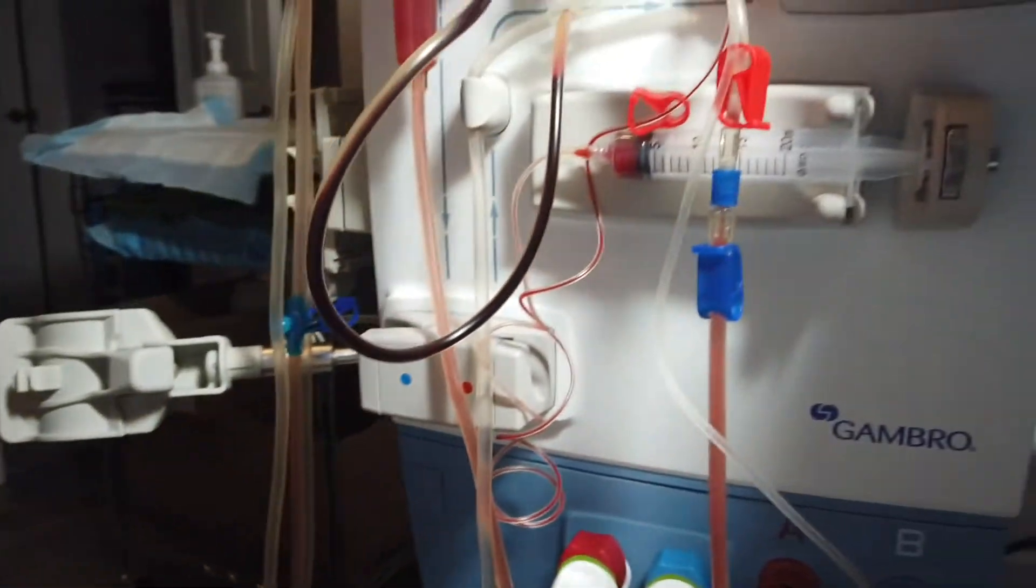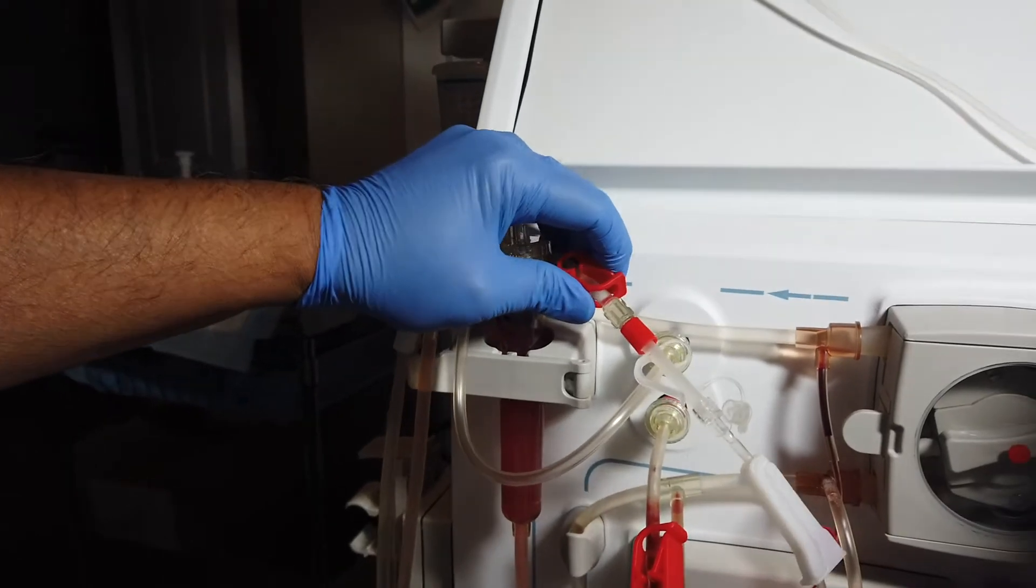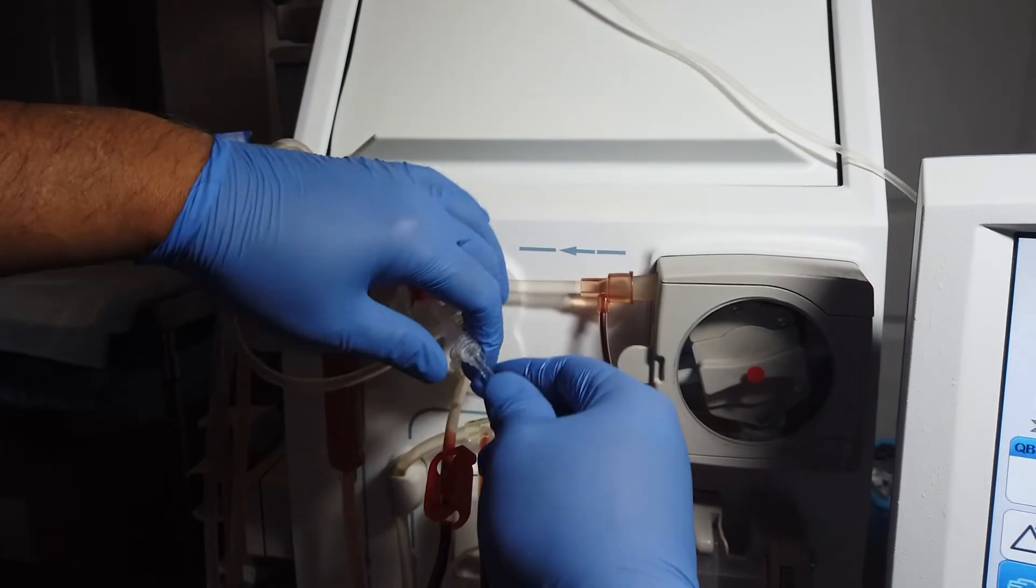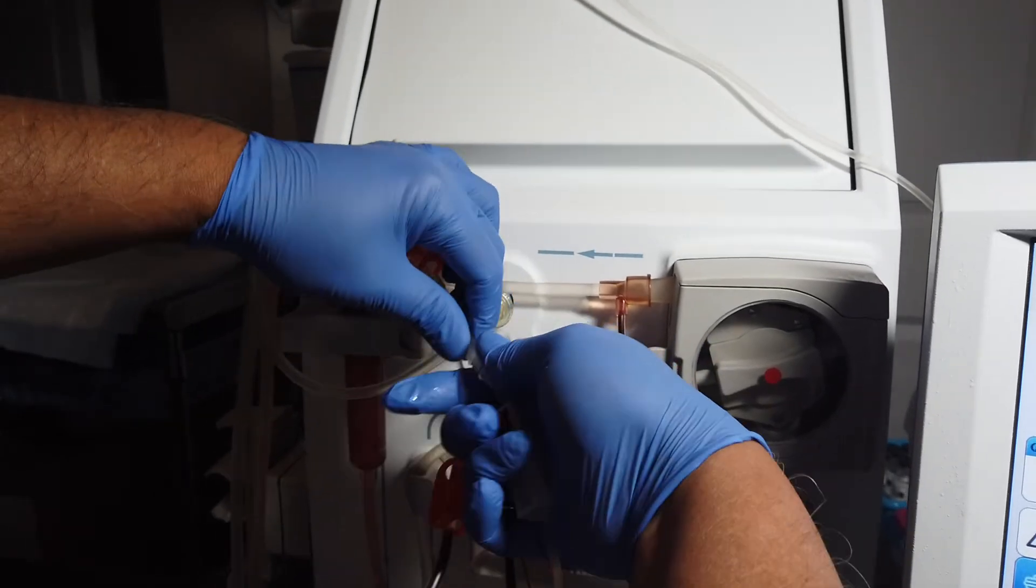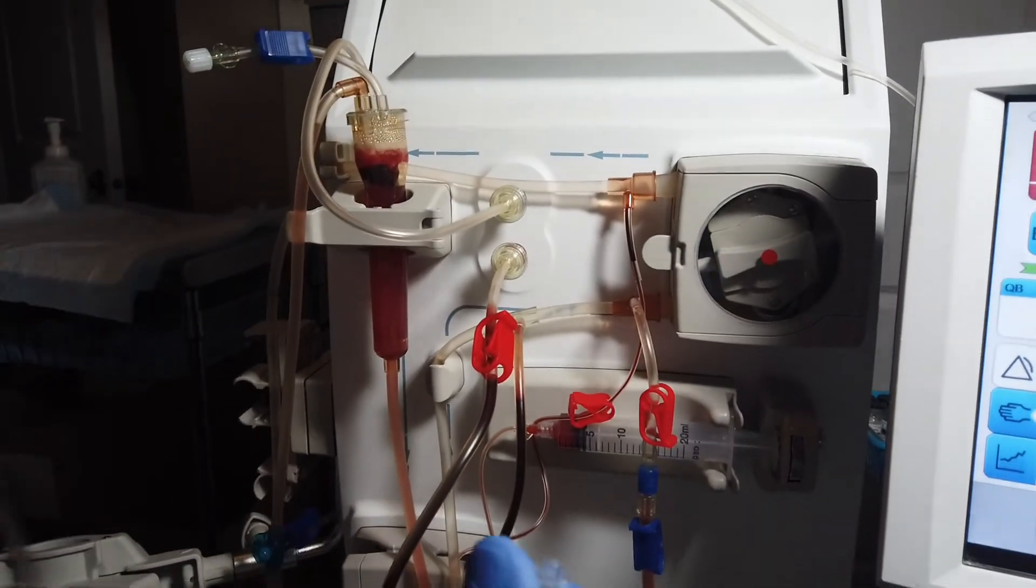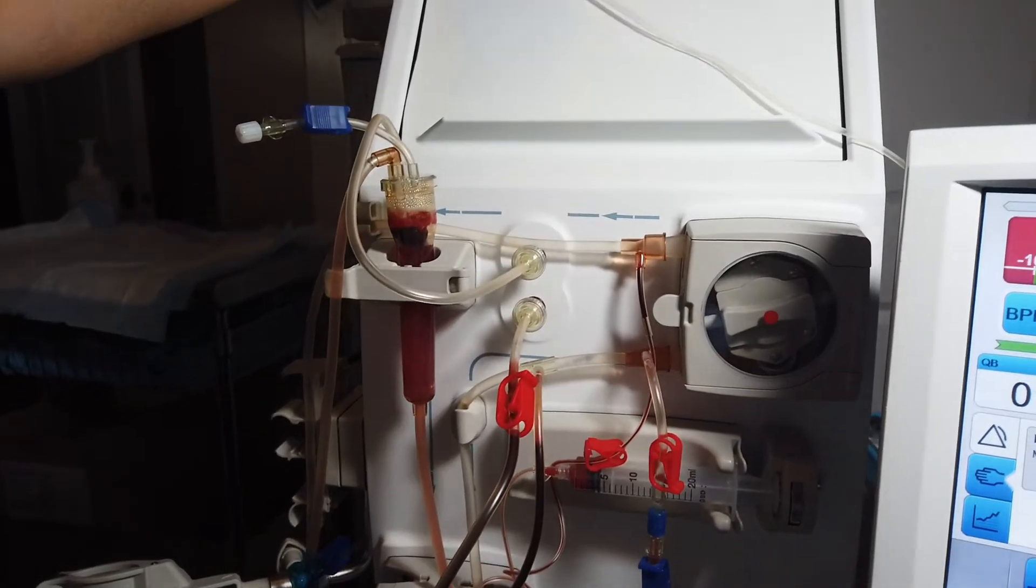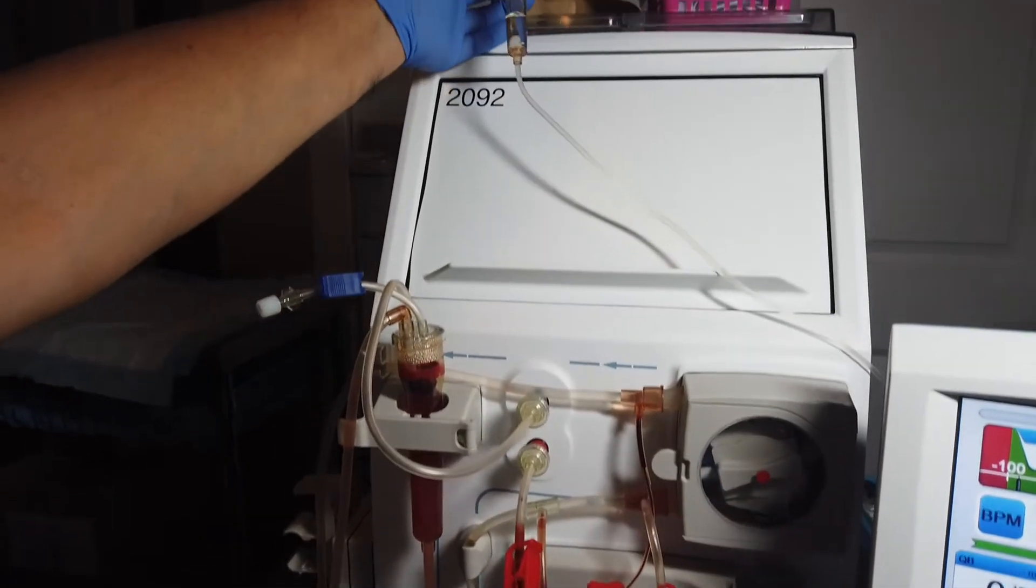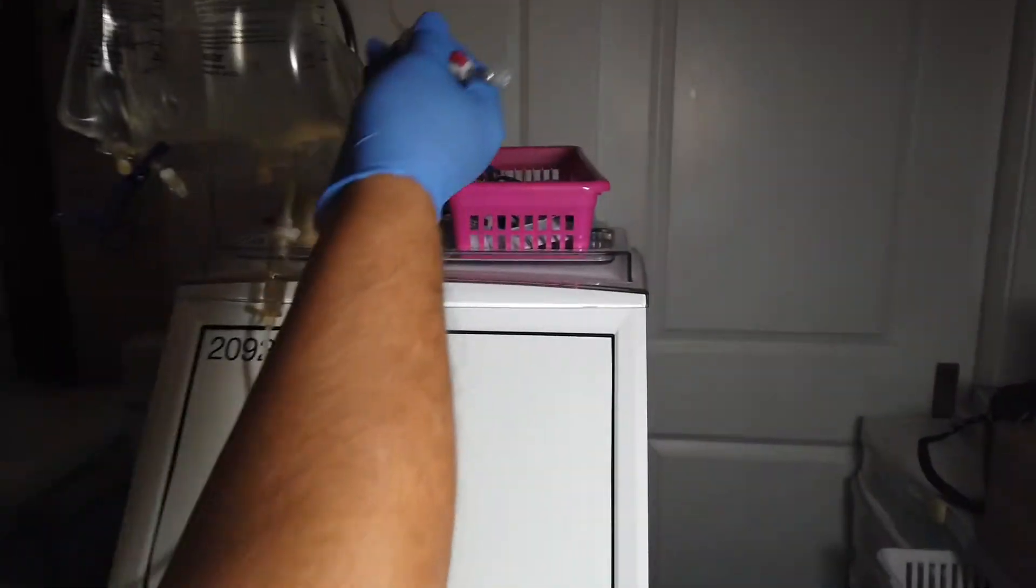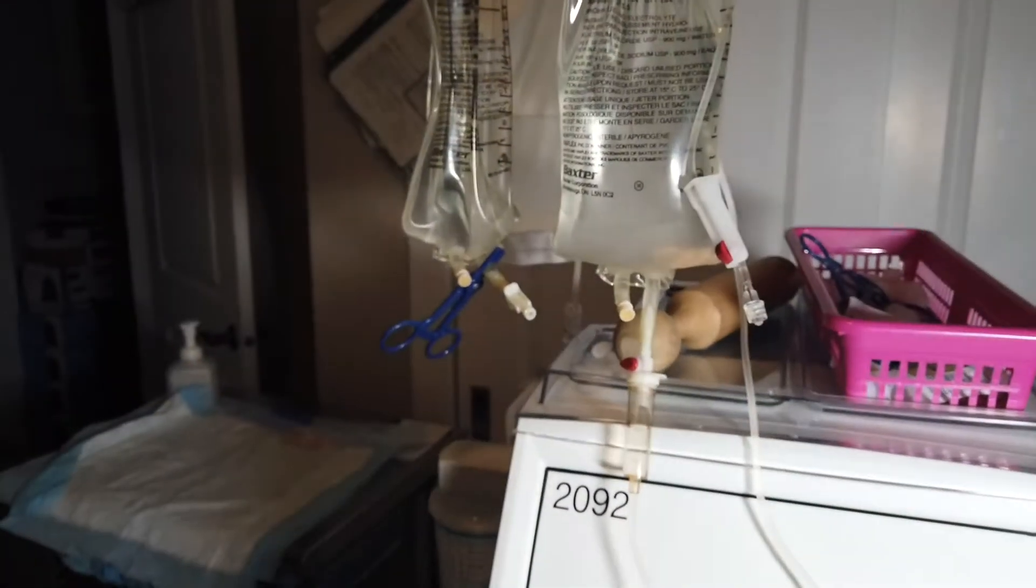The next thing I do is close the clamp on this unit here, then unscrew it. The reason why is because if I don't unscrew that, I have to pull this out and this is a sharp object. I don't like to have anything sharp at all, so I'll put this away. Now this line is totally out of my way.